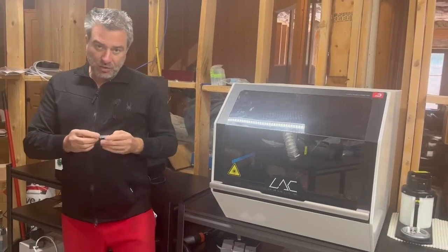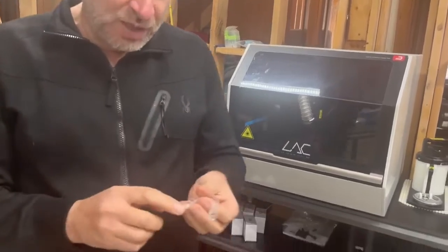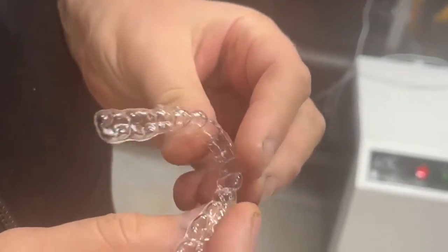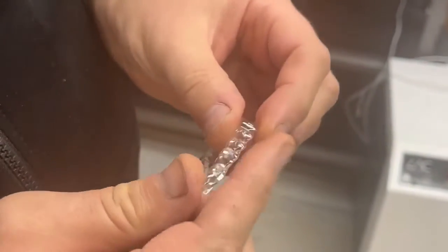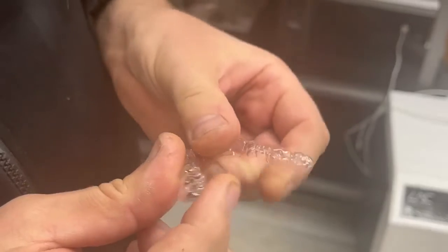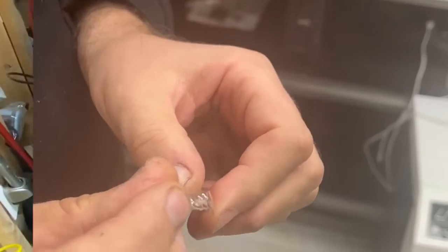I'm going to come closer to the camera so we can zoom in on the edges and show that these edges are just slightly short of perfection, but there's nothing — no extra material or anything. If your trim line is good, this is a good cutter.